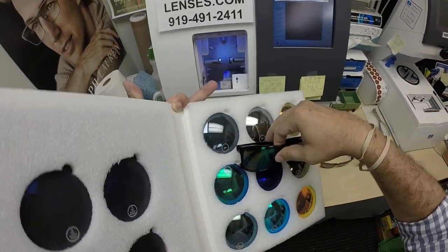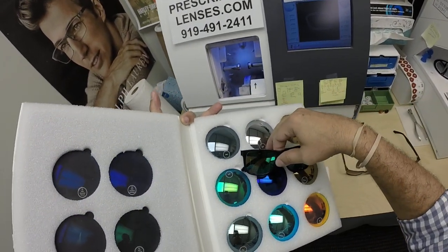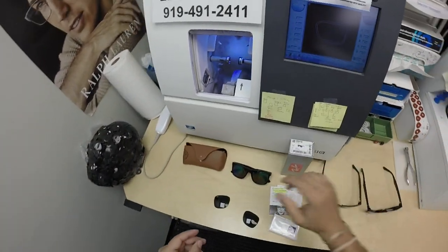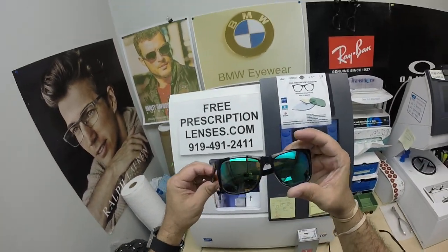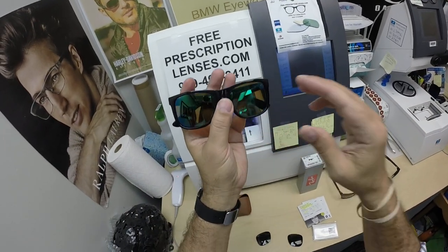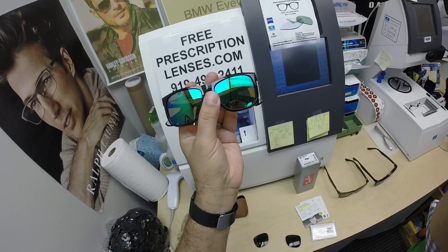Hopefully that shows up just like that next to it. Taking pictures of mirrors inside is very hard — it's even harder outside. But again, thanks for your purchase, and now hopefully everyone else has gotten a chance to see how I bring that loving feeling back to glasses. Thank you.